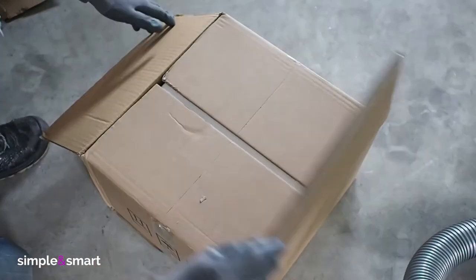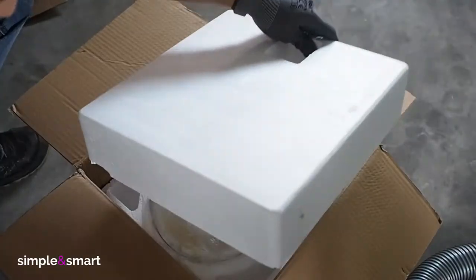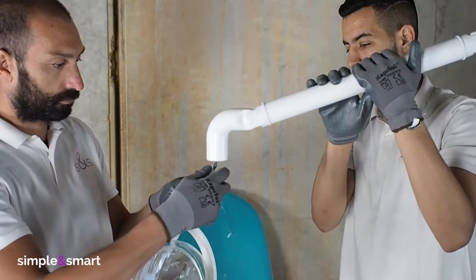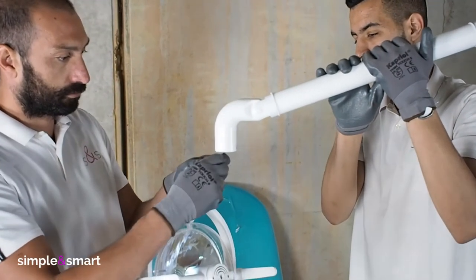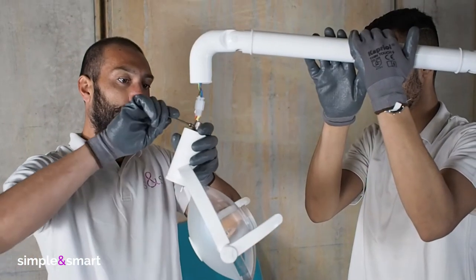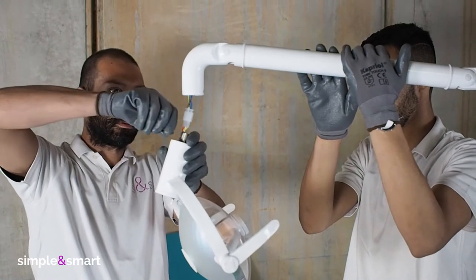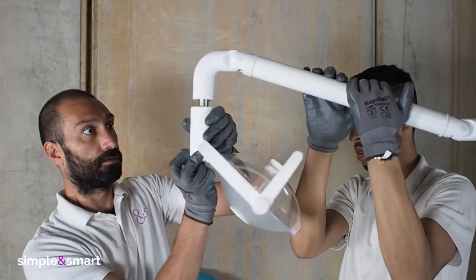Open the lamp box. Connect the wire connectors. Take out the screw. Insert the lamp on the lamp pole and lock it.